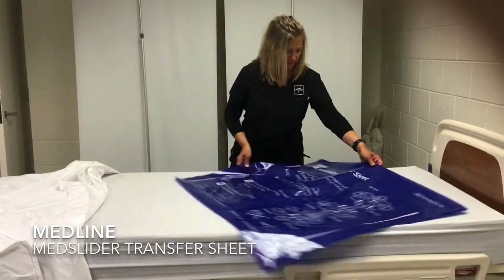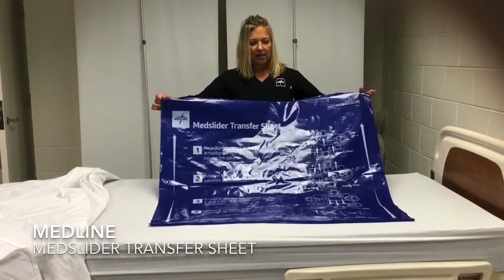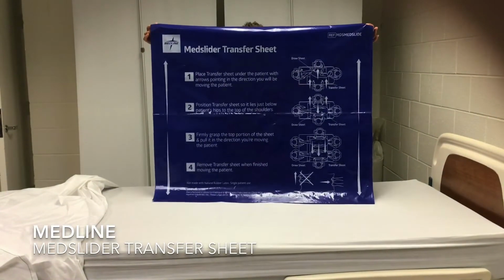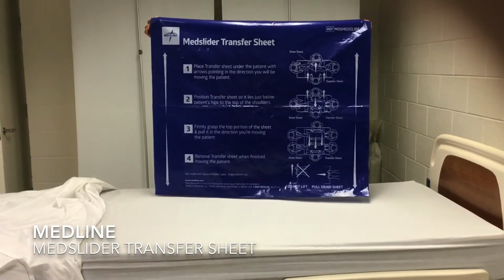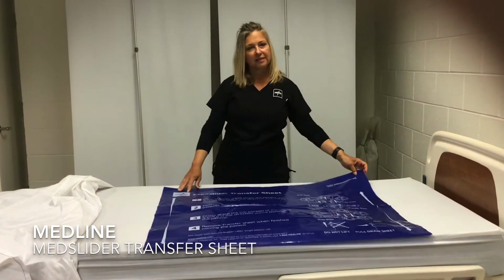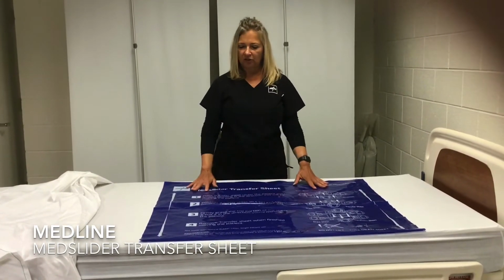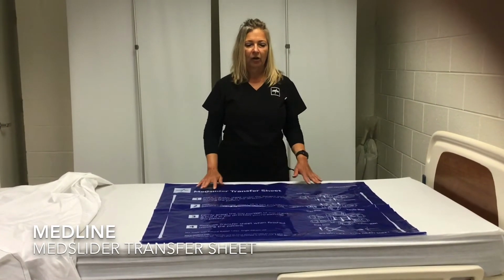So what I really like about our MedSlide transfer sheet is that it has directions on the face of the MedSlider. So if you forget any of the instructions that we're going to provide you today, you can simply look on the sheet to refresh your memory on how to use it.